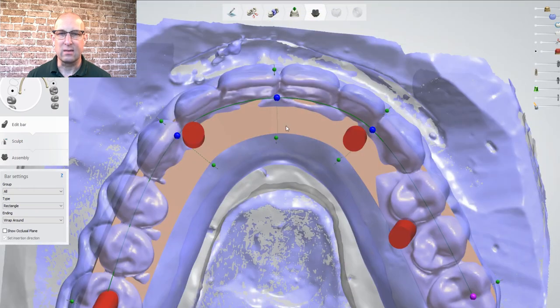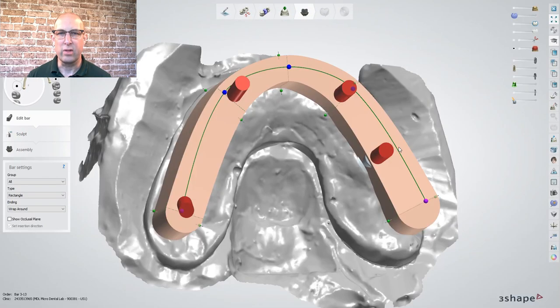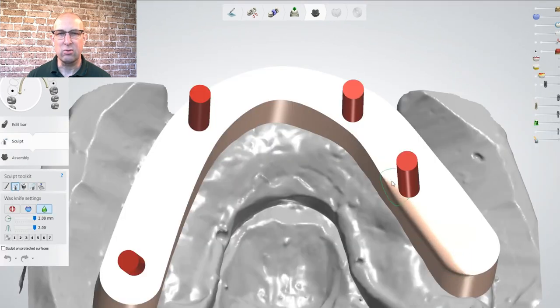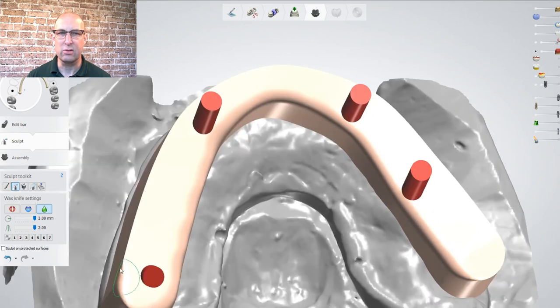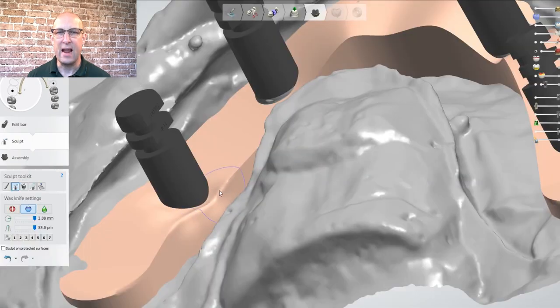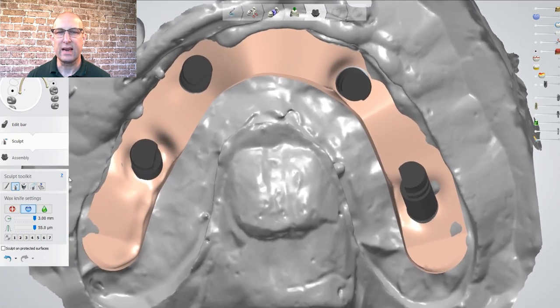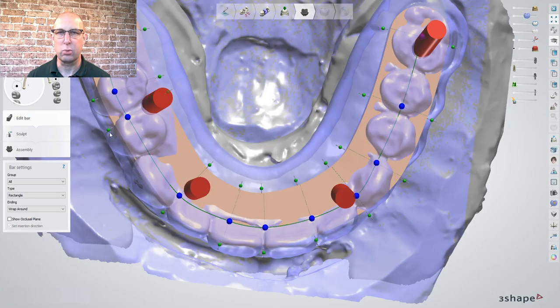The lingual side can be brought in slightly as well, but most of it is getting rounded or angled with a smoothing tool during the next steps. I am smoothing the occlusal edges first and then prepare the basal side to be adapted to the gingival. I noticed that when intersections are too severe or the margins of the post are too deep inside the bar, 3Shape cannot properly cut the bar to the tissue — so you can use the minus or smoothing tool to dig out some of these margins. I have set the cut to gingival settings to 0mm, but it can be more or less depending on your tissue pressure preferences.